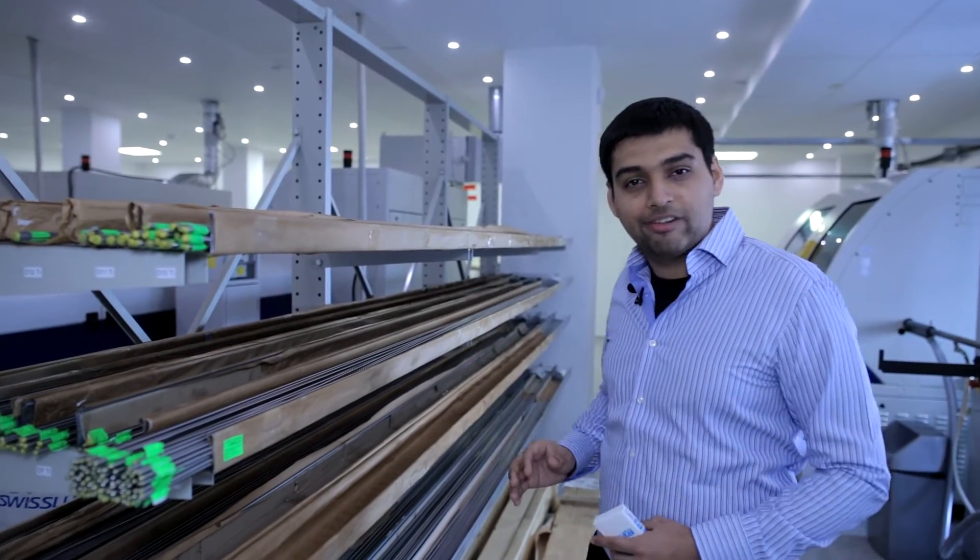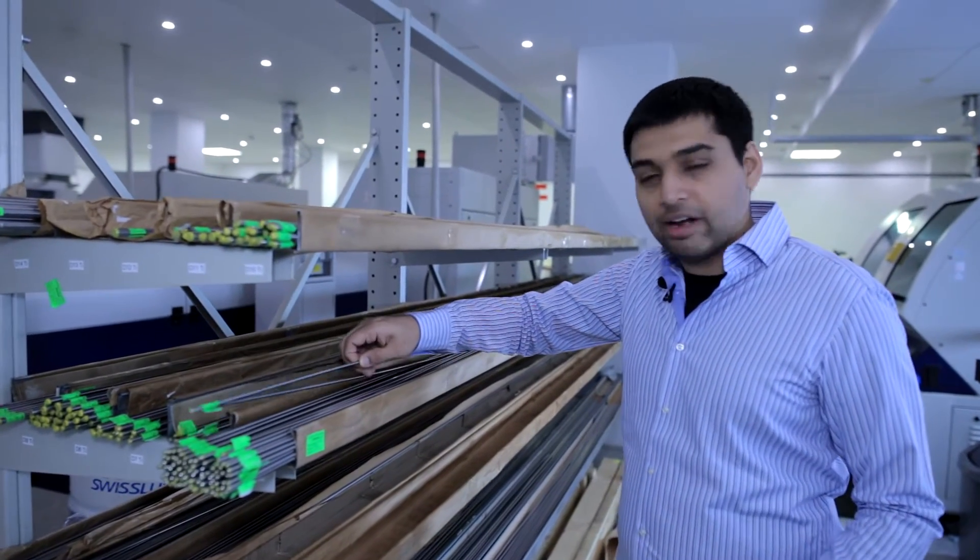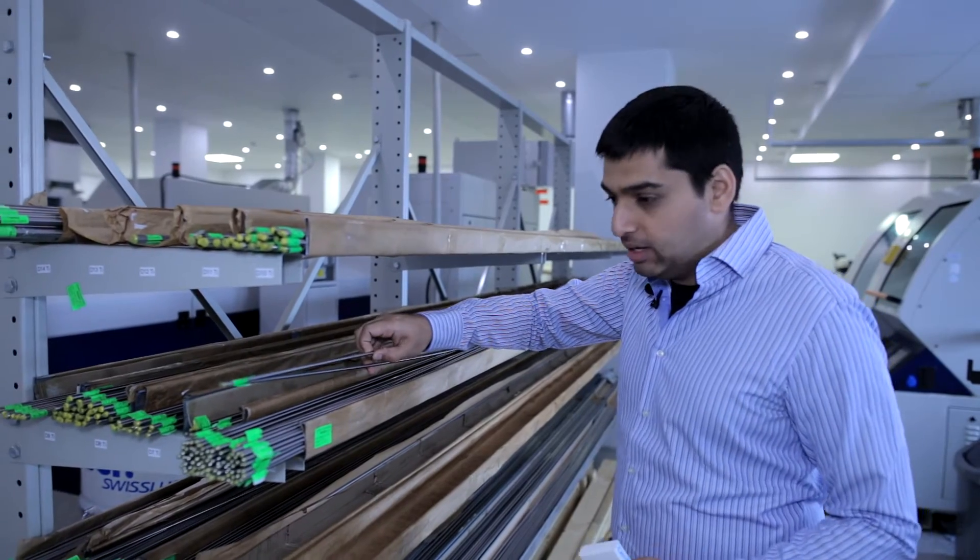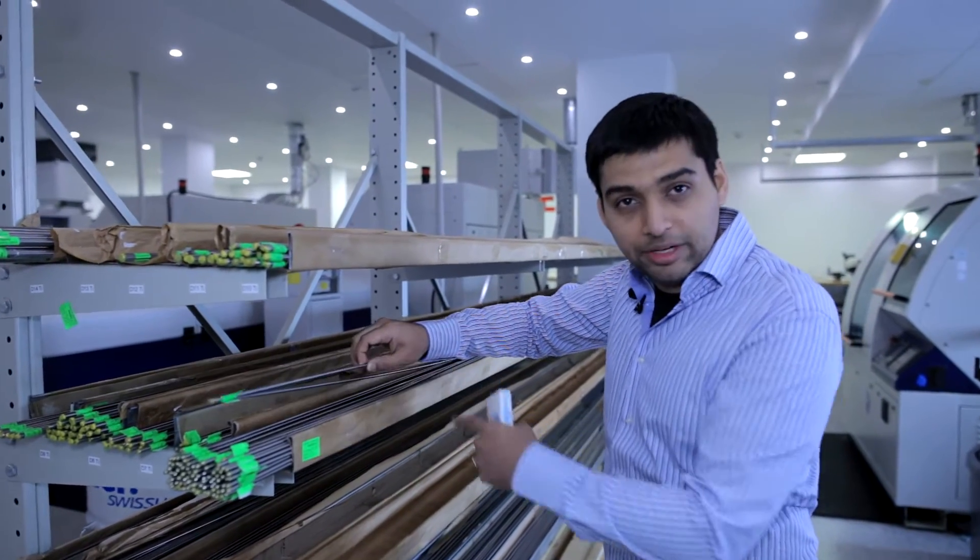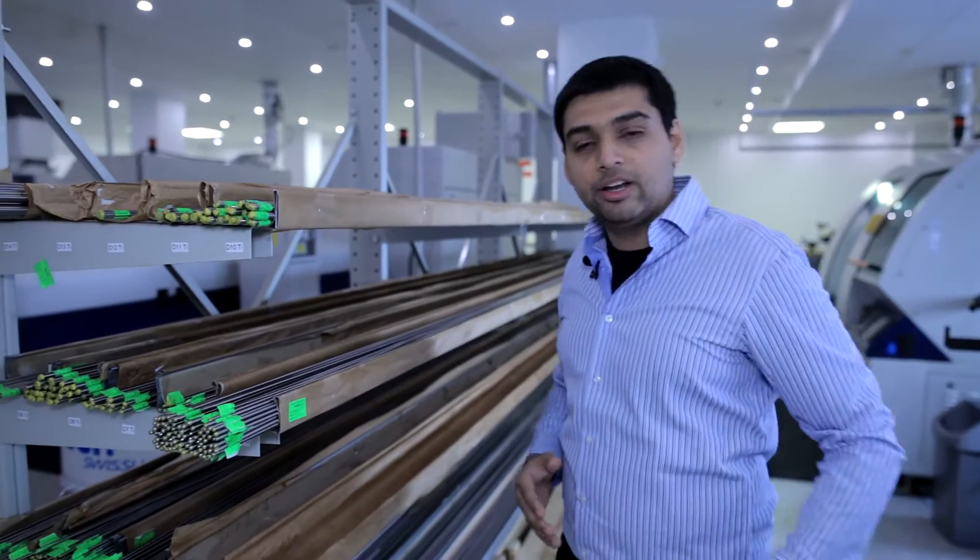Alright, so this is how the implant manufacturing starts. This is your titanium store. They have titanium grade five of a very high quality from an American company. You have different diameters and these are then fed into these CNC machines which are then milled into various parts.